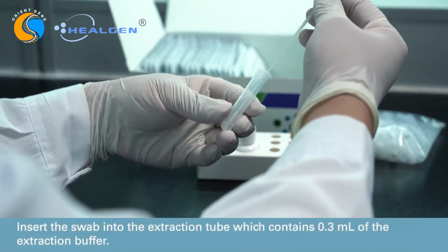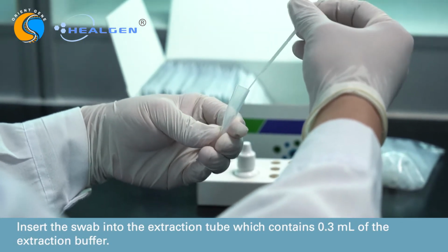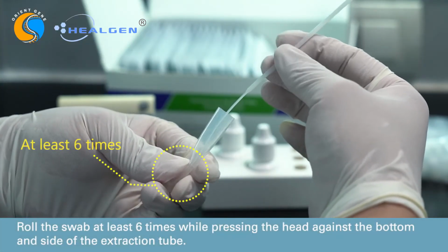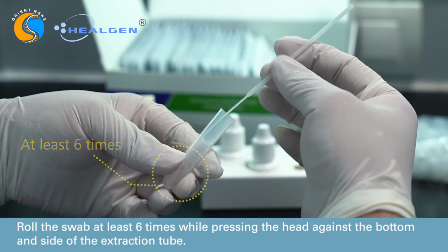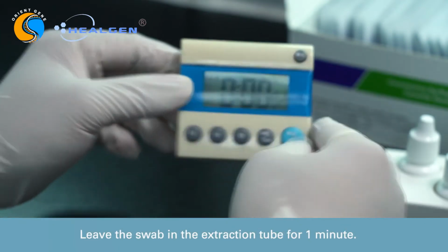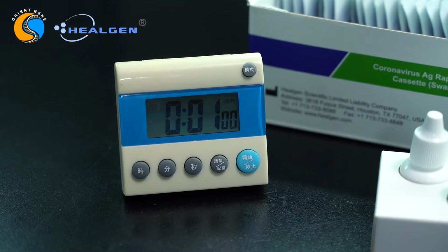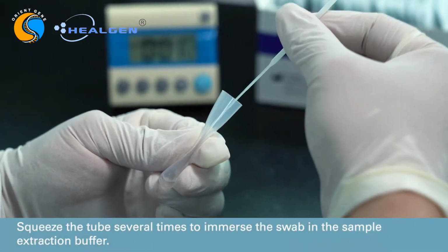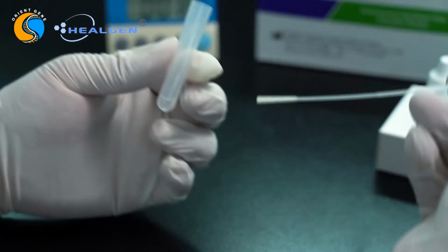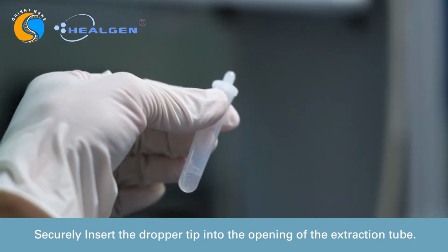Insert the swab into the extraction tube, which contains 0.3 milliliters of the extraction buffer. Roll the swab at least 6 times while pressing the head against the bottom and side of the extraction tube. Leave the swab in the extraction tube for 1 minute. Squeeze the tube several times to immerse the swab in the sample extraction buffer. Securely insert the dropper tip into the opening of the extraction tube.